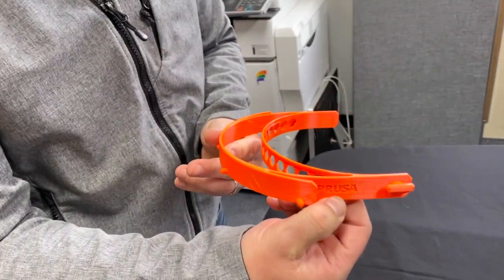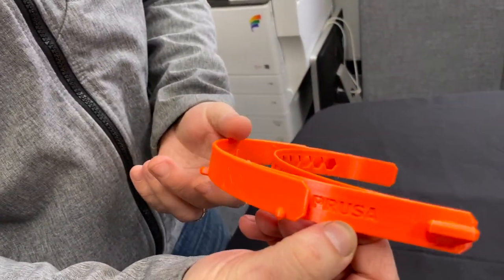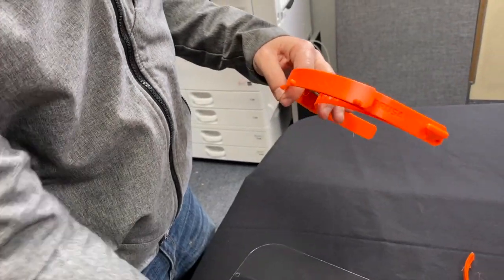The side of the frame has the name Prusa on it. That's the designer. That should be facing upward.